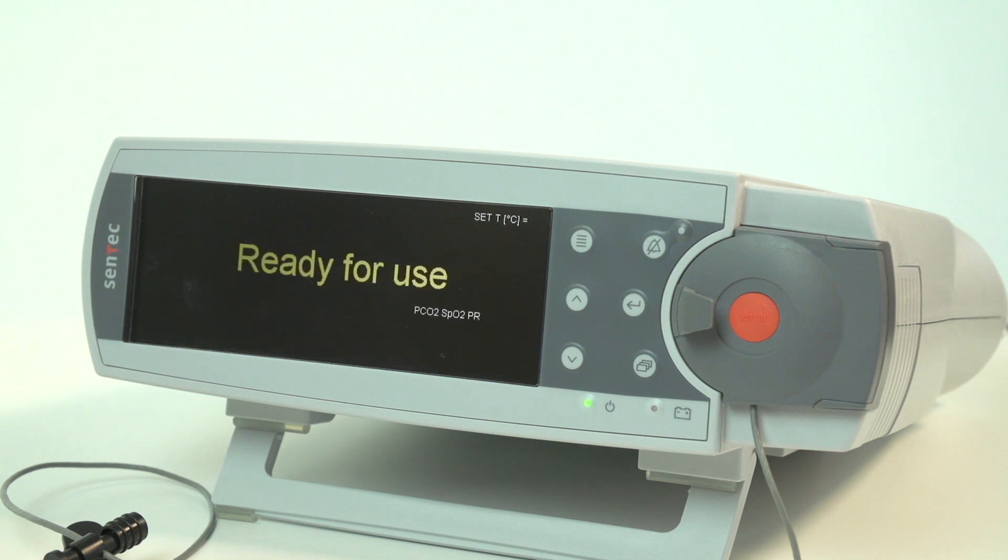If the Ready for Use screen displays after calibration, the error message has been successfully resolved.